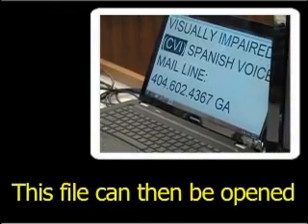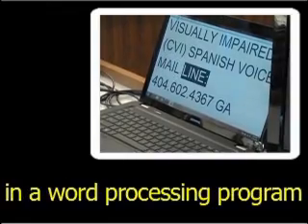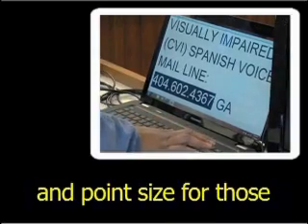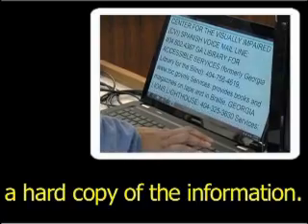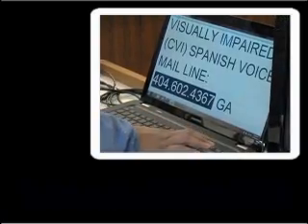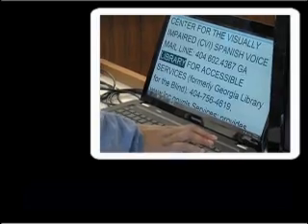This file can then be opened in a word processing program and printed on paper in the user's desired font and point size for those who might prefer to have a hard copy of the information. With the touch of a key on a keyboard, a user reduces the point size of a document.